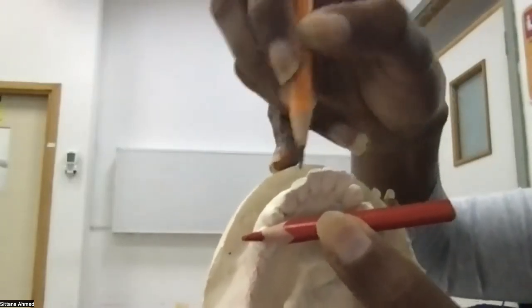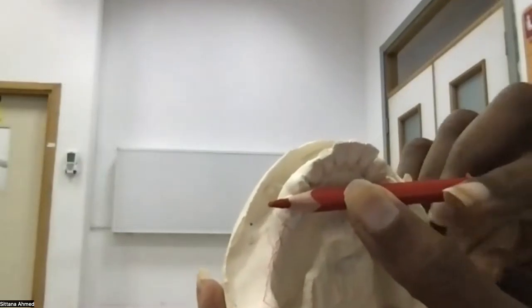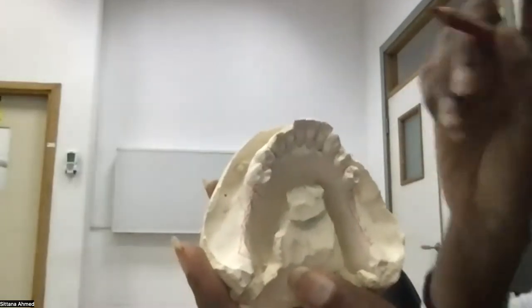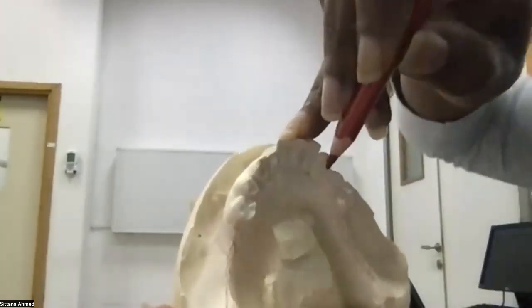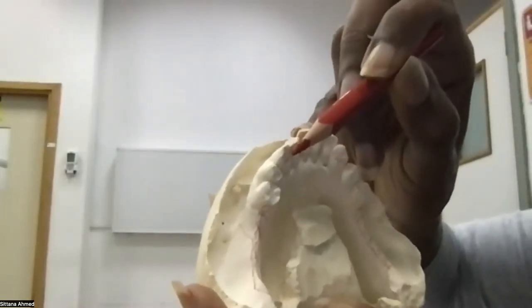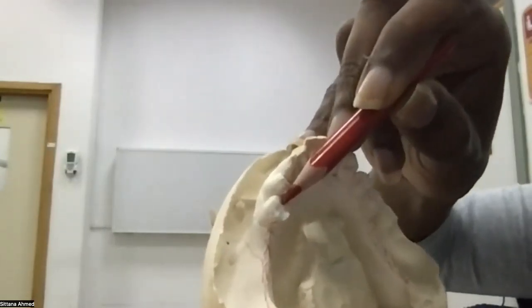In this case, they are all four incisors, weak teeth. So the strongest decent teeth coming next are the canines. So for each distal extension, I will need one indirect retainer. So one indirect retainer here for this side and one indirect retainer on this side. Since it's a canine, the actual rest that goes for it, we call it a cingulum rest. The one here, again, cingulum rest, and this is for a premolar, it's an occlusal rest. Tamam? So here I made my design.